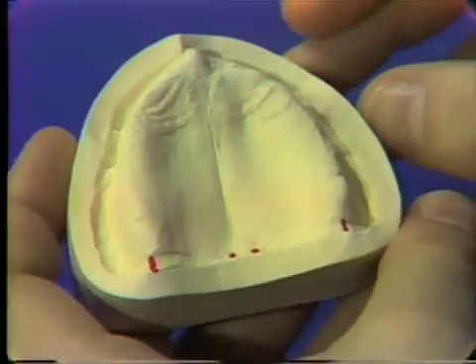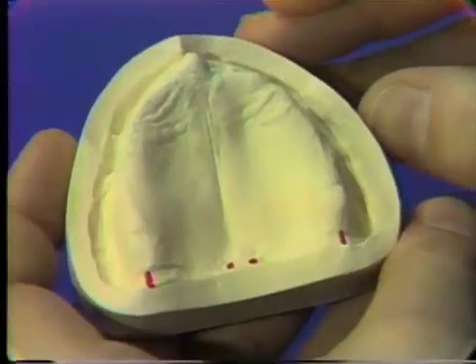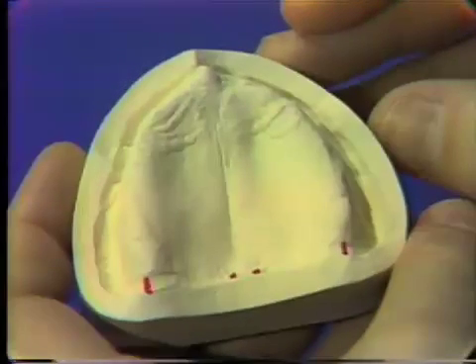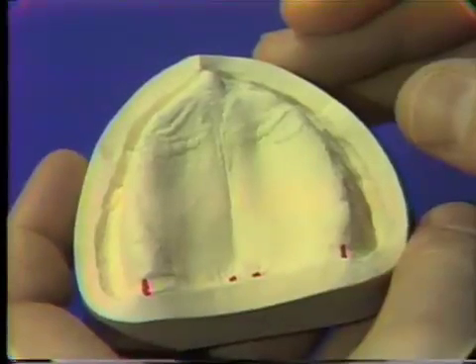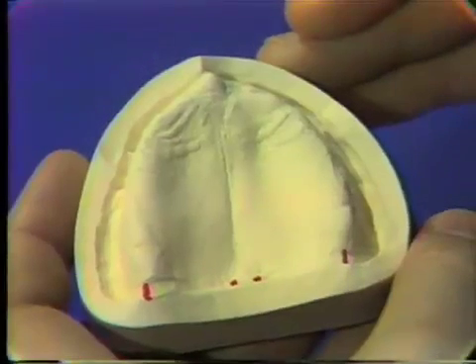The posterior border of the posterior palatal seal is determined from what we call the ah line, or the vibrating line, which is determined from the patient.